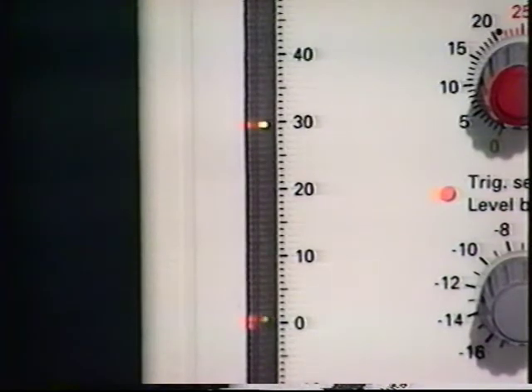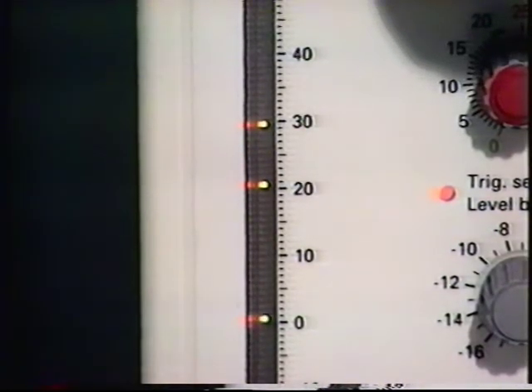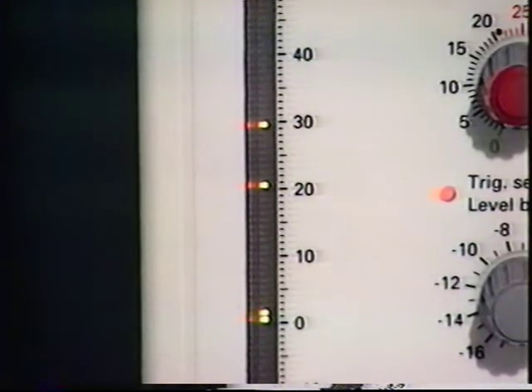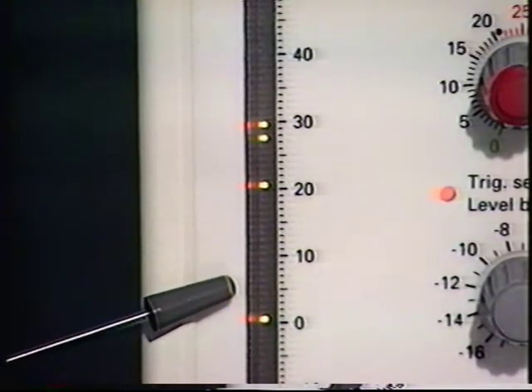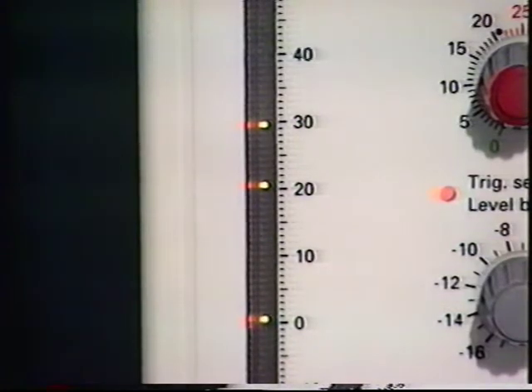Another pair of flashing diodes indicate the actual pressure delivered to the patient. The left one shows inspiratory pressure, and the right one shows expiratory pressure. Note that these may separate during the breathing cycle.